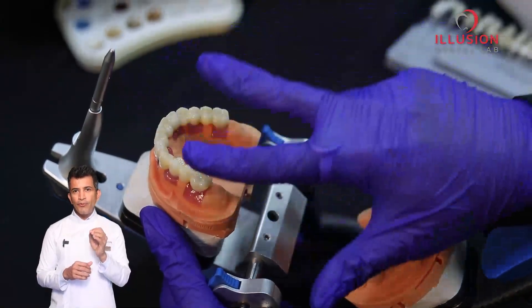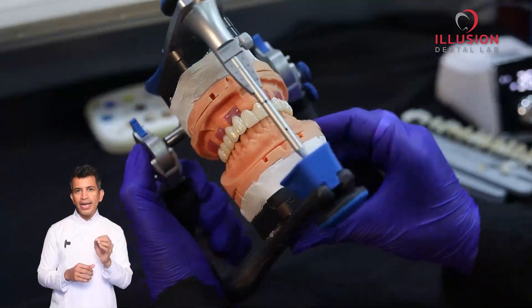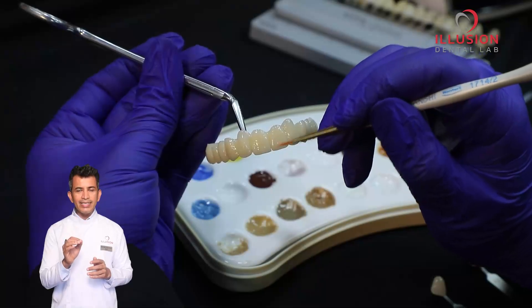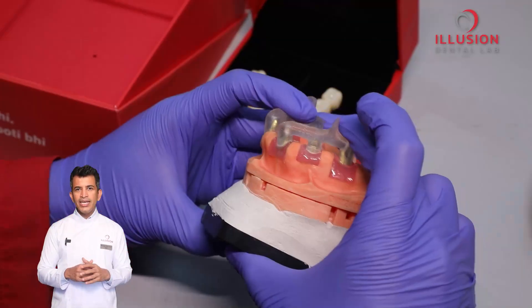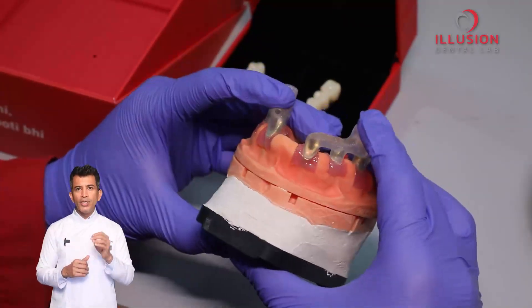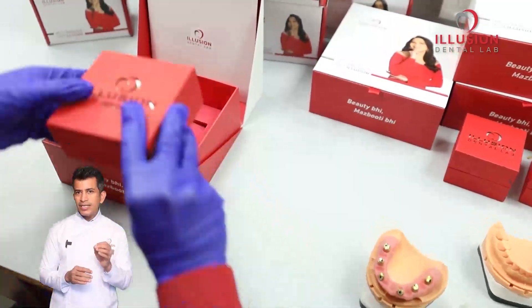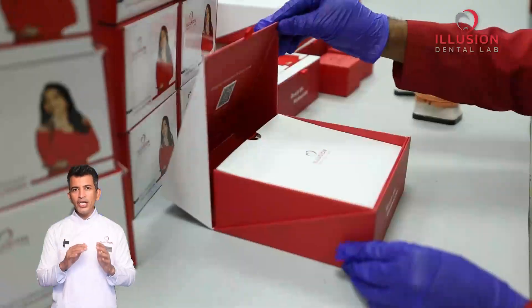Once we have the smart abutment and the restoration ready, we run a full check — from fit to occlusion, to contact, to height and aesthetics. Everything is checked. Then comes our polishing, glazing and final quality control. At the end, it all fits beautifully. The complete case including the model, customized abutment and the prosthesis is now ready for dispatch.